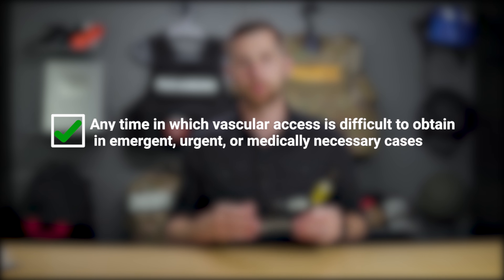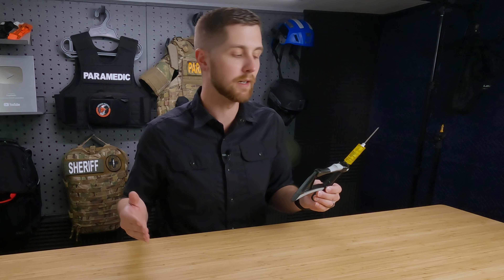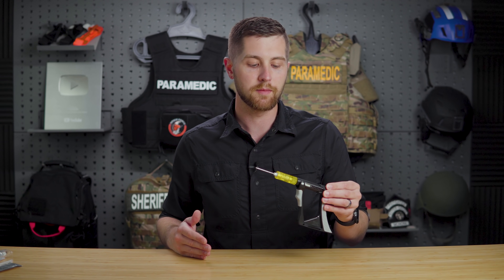The textbook indications for an IO are when an IV is not successful or when IV insertion will take a prolonged amount of time in patients who need rapid medication administration. Traditionally this is in cardiac arrest — it doesn't matter that this procedure is more painful because the patient is unresponsive. However, this device can also be used in conscious patients, and we can discuss ways to reduce pain. We also use this in severe shock states where we cannot get an IV because of vasoconstriction.